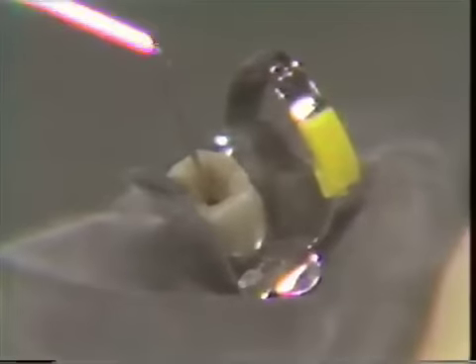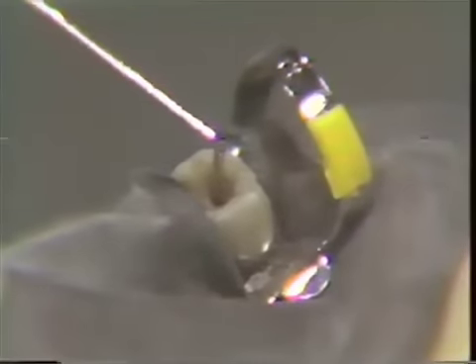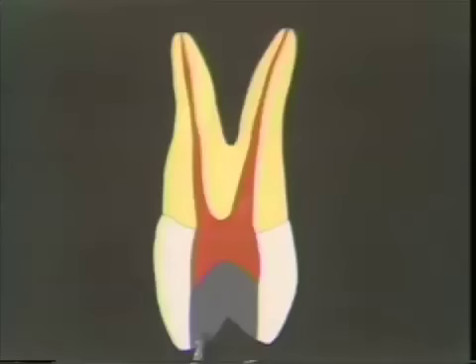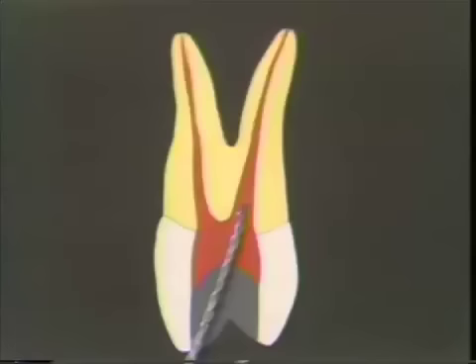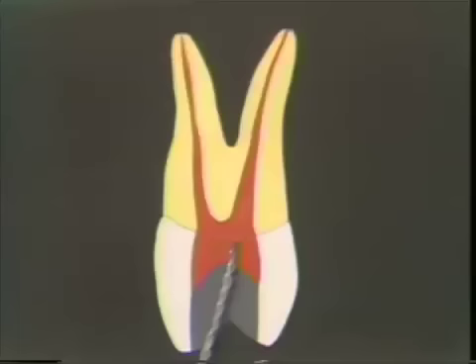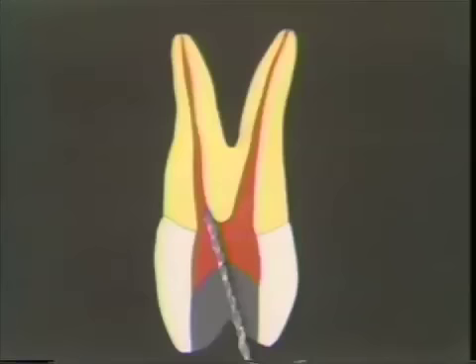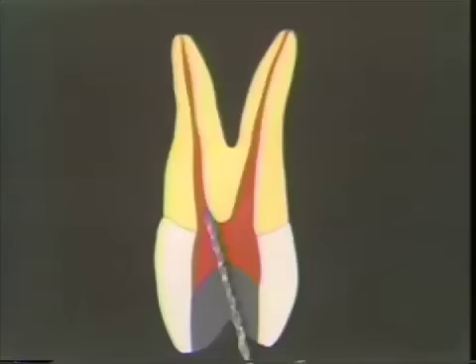The maxillary bicuspids are usually no problem to students. The first bicuspid usually has two canals; the second bicuspid maxillary usually has one canal, but either one could be reversed. You have to check both teeth for two canals. You do that by coming in from the buccal and looking for a canal going off to the lingual, then changing the direction of your explorer and feeling for a canal on the buccal. A cross-sectional diagram shows that if you come in from the buccal, you'll have direct access right into the lingual canal. Pulling up slightly and changing direction, you'll be able to get into the buccal canal. You check maxillary first and second bicuspids this way to make sure that they have one or two canals.